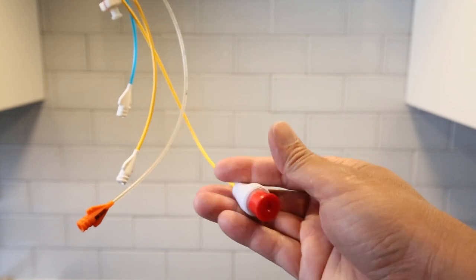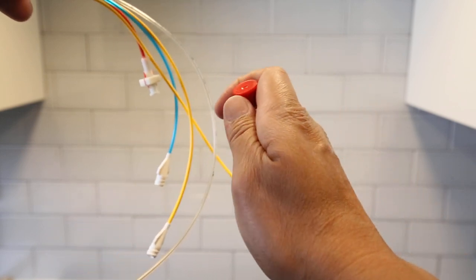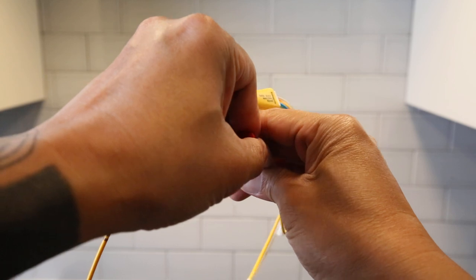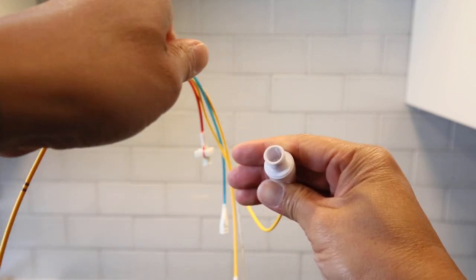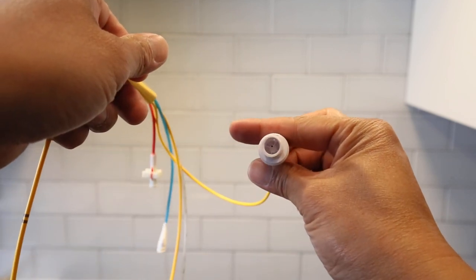And then finally, your thermodilution. Okay, when you open it, you can see the pins.